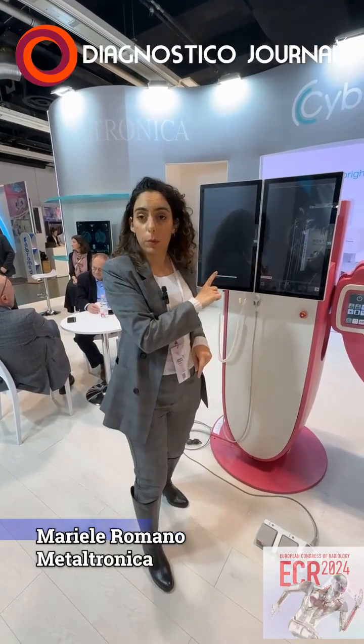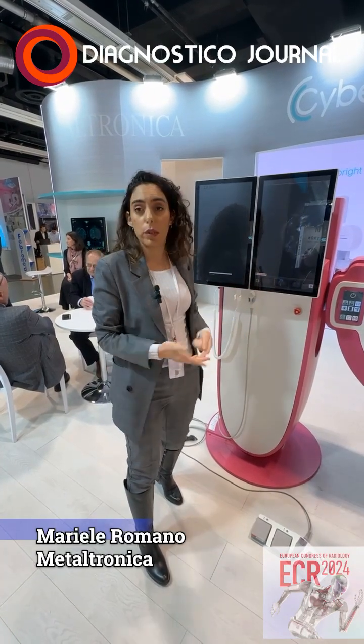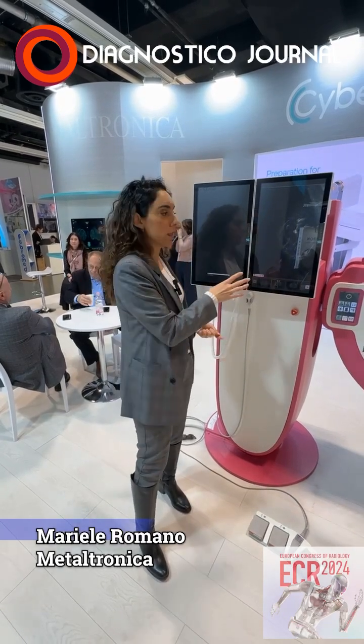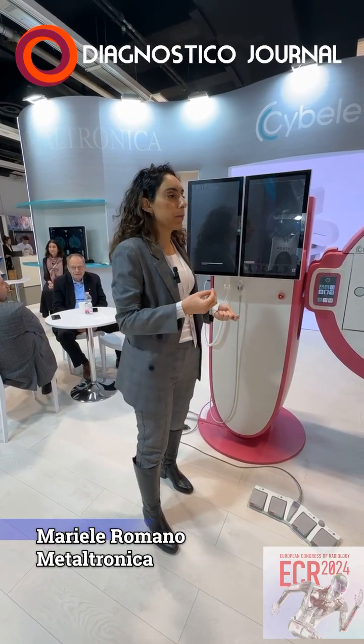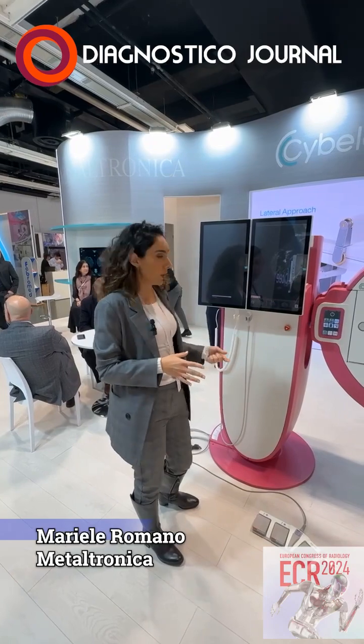Here we have the mammo that the same patient already performed, so we have the possibility of retrieving different exams of the same patient to have a look always indirect to the mammo as a reference. So the technician or the radiographer already knows where it has to go, and it doesn't have to keep in mind where is the target region.